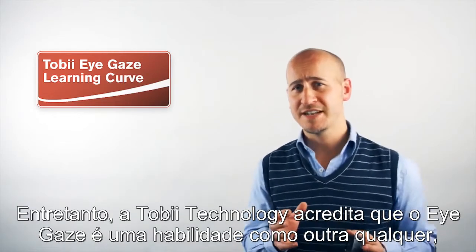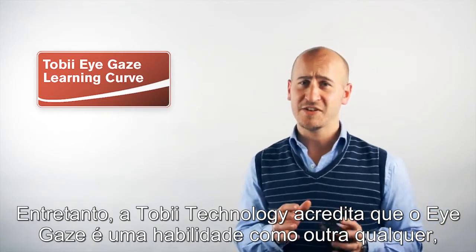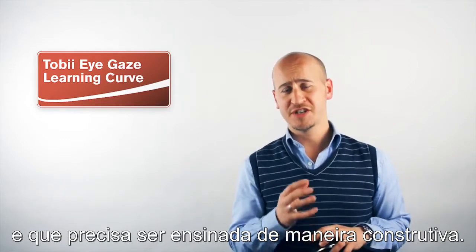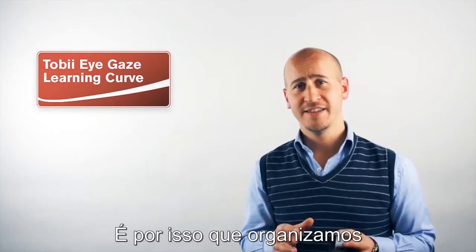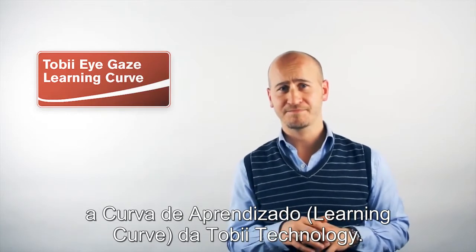However, at Tobii Technology, we believe that eye gaze is a skill like any other and that it needs to be taught in a constructive way. And that's why we've pulled together the Tobii Technology Eye Gaze Learning Curve.